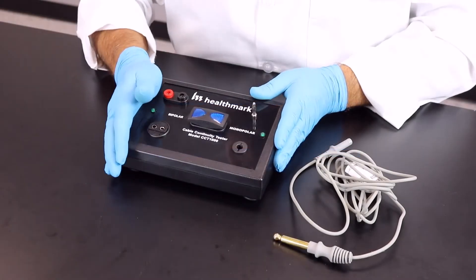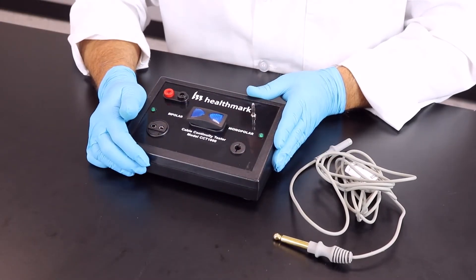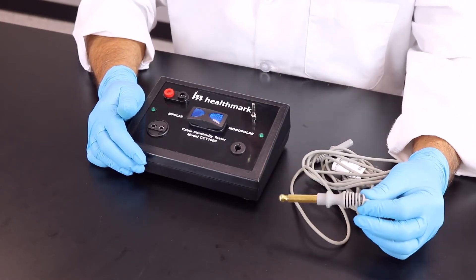So once you secure the cable continuity tester to your workstation, now we're ready to test. We're going to start off by testing a monopolar cable.